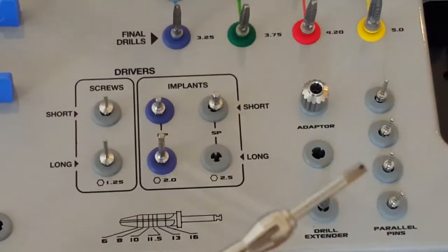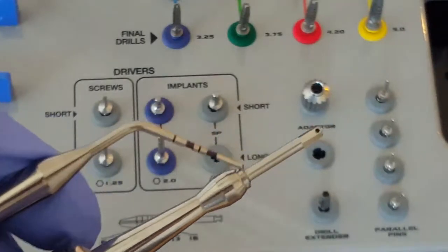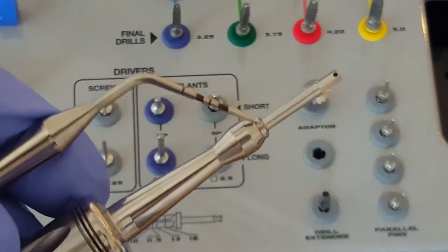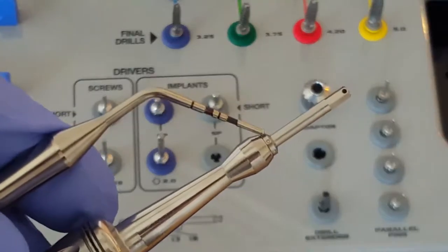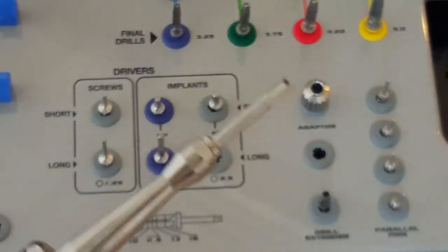On the driver, I can see that there are dots. These dots here correspond to the flat of the hex on the implant, so we can control the position.